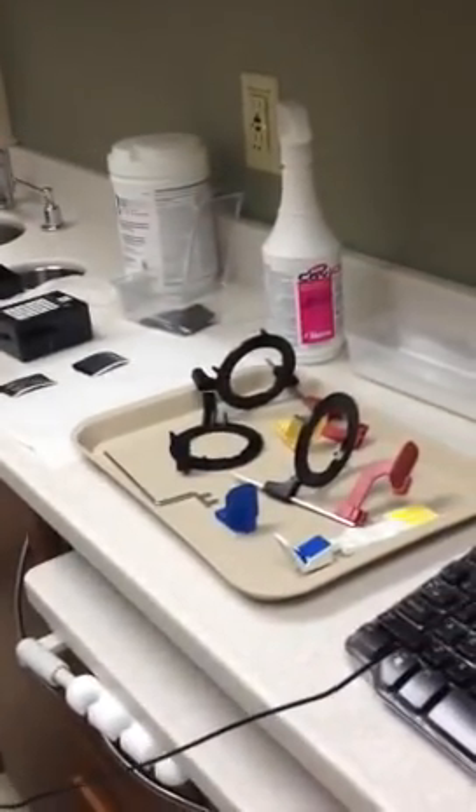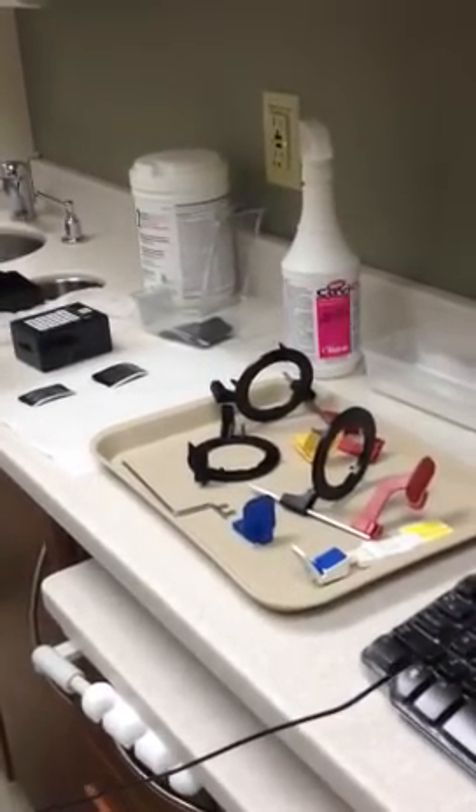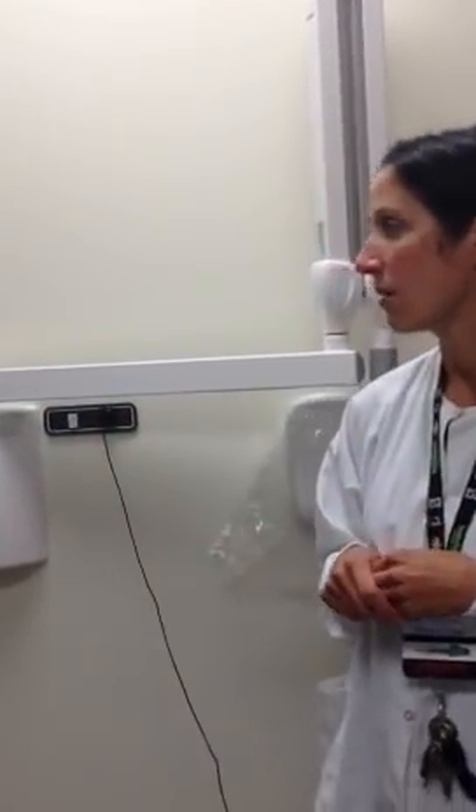After that you want to wipe it all down and then put it back into the cupboard for the next client. If you don't have time to disinfect or to clean the room, a paper towel should be left on the client's seat indicating to the clinical monitor that this room needs to be cleaned. That's a general sign for all the x-ray units — if you can't physically go up to them and say this room needs to be cleaned, leave a paper towel on the chair.